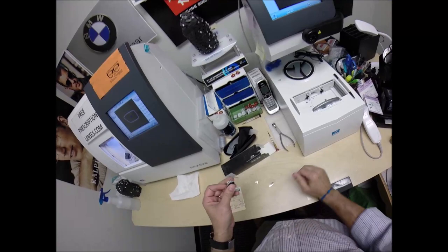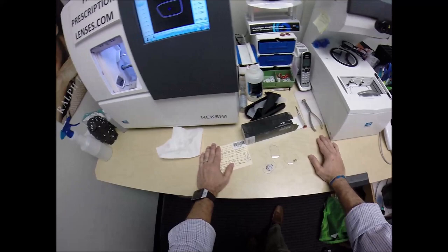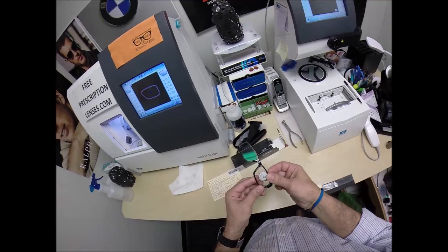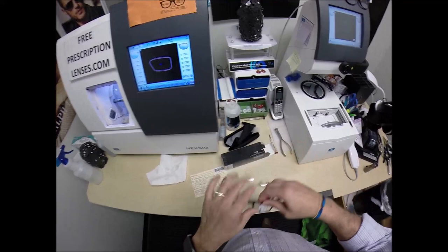So think of this: this first two numbers can be real values, it tells us what the powers are. This last number could be anywhere from zero to 180 and it just tells us where to turn that fine tune knob. A straight line is zero to 90 to 180. So we're going to stop just shy of the 90th meridian, the 82 for the right eye, 73 for the left. Now David I want you to open the door with your mind. Pretty good David, first day on the job and you already did it. Telepathy really works.